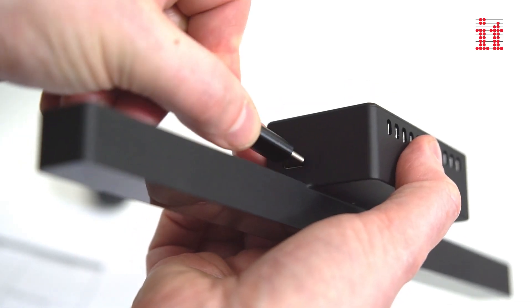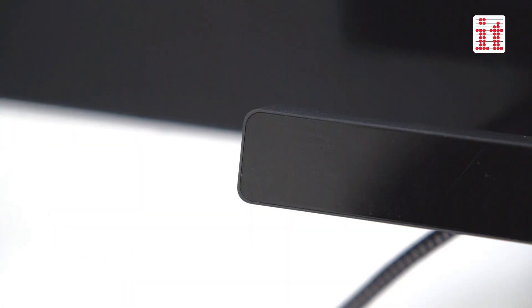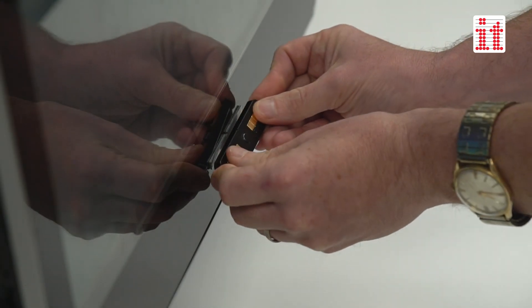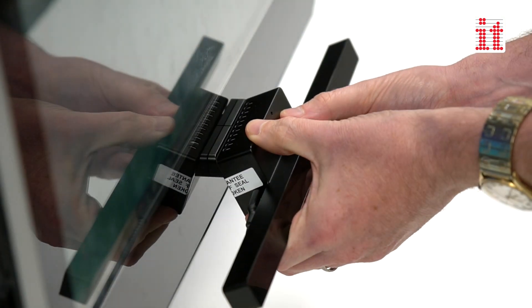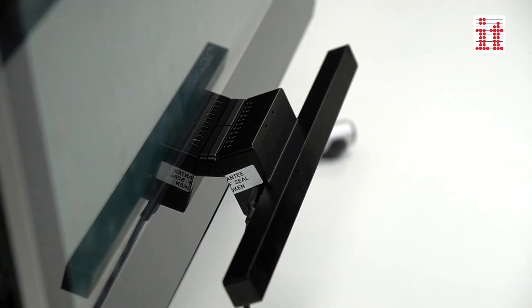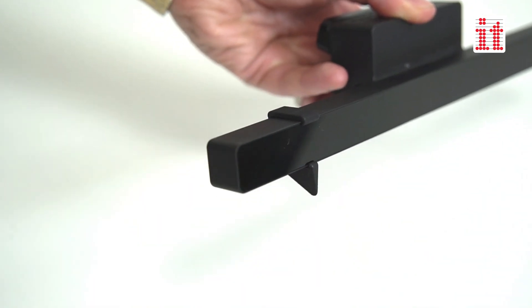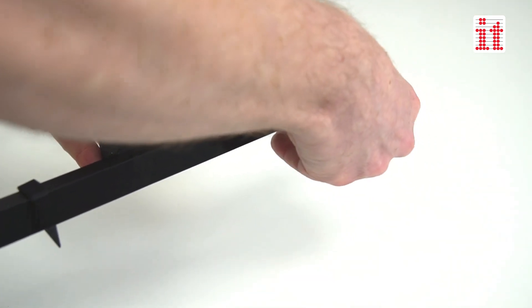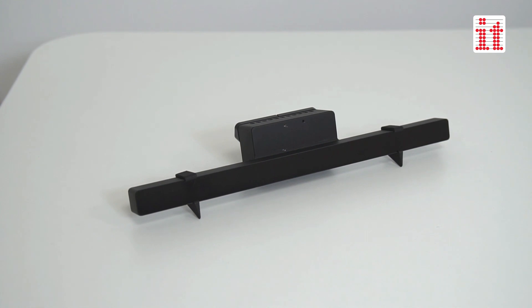Simply connect the eye tracker to your computer to turn eye movement into computer control. The included mounting plates and bracket are used to easily attach the eye tracker to your computer screen. An alternative attachable support is also included for users who prefer to mount the eye tracker on their desk, tray or surface in front of them.